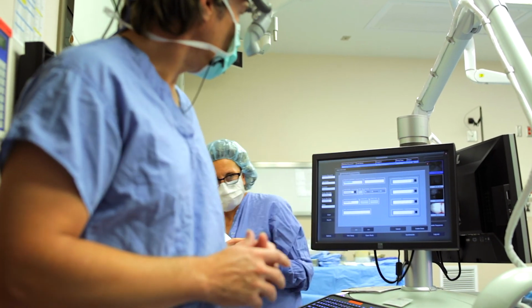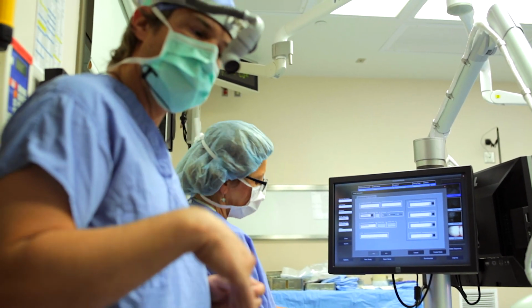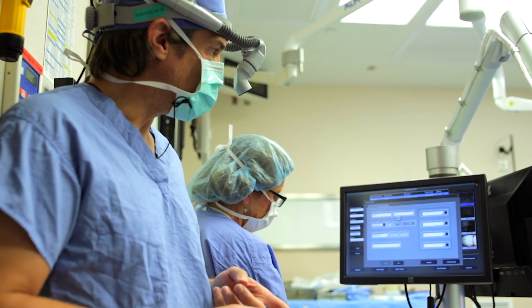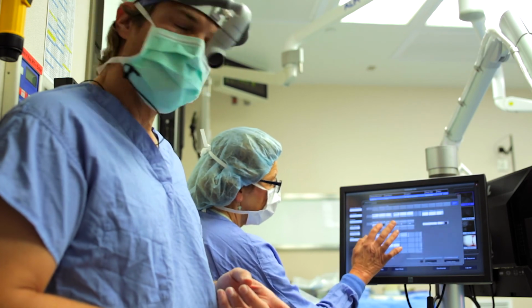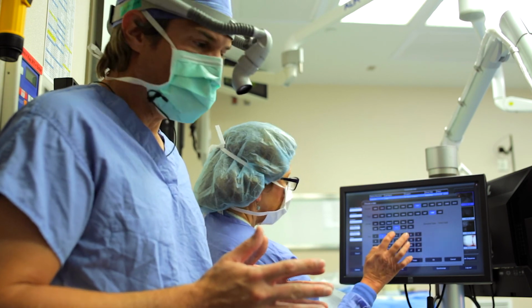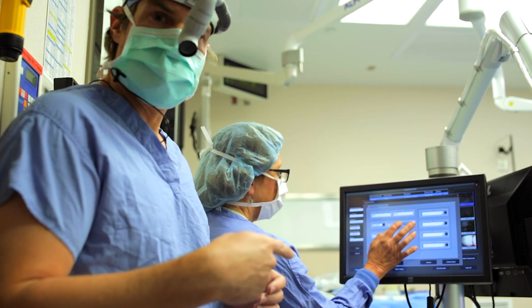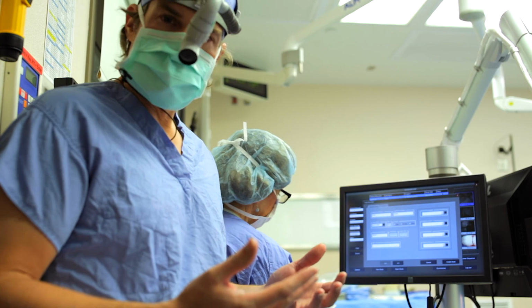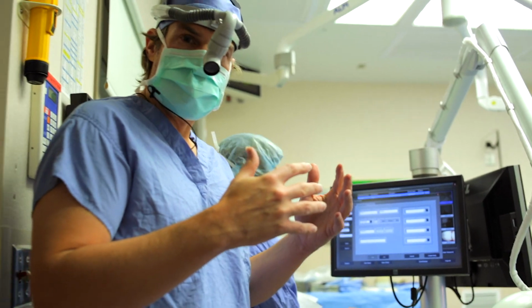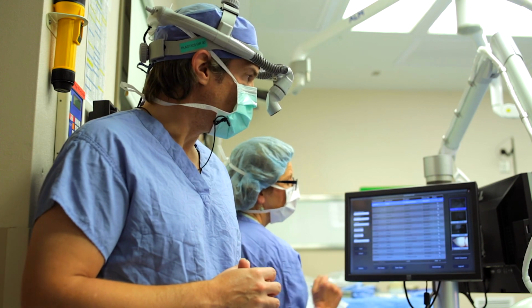So as she is filling that in, I'm going to give a couple of the key points that we needed to really get in there, so that if you want to go back and look for a SPY image that you need to have in, certainly the patient's first and last name, their date of birth, the Mayo Clinic number, as well as the primary surgeon that obtained the image. Those bits of information are then searchable on the machine, so that you can go back and say, show me all the SPY images that Jacobson did, or show me all the SPY images that were obtained by a certain patient. All of that is then cataloged into that information, and it's all retrievable.